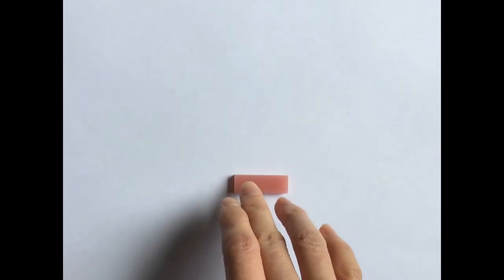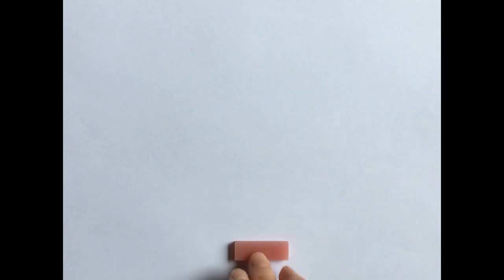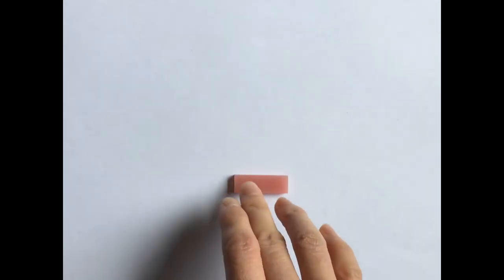So, with the rise of 3D printed materials and the digital manufacturing process, what is the best way to repair broken 3D printed dentures? My research will explore three different methods of surface treatment and their effects on the strength of a repaired denture after artificial aging.